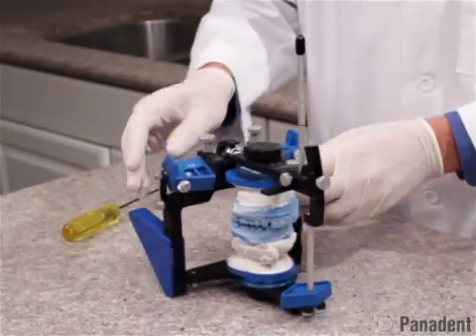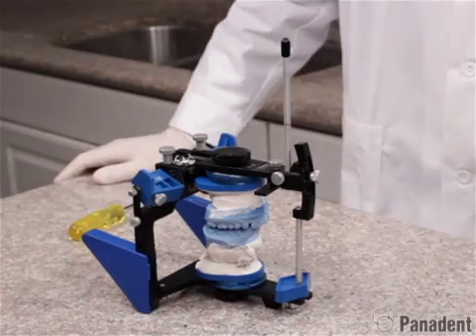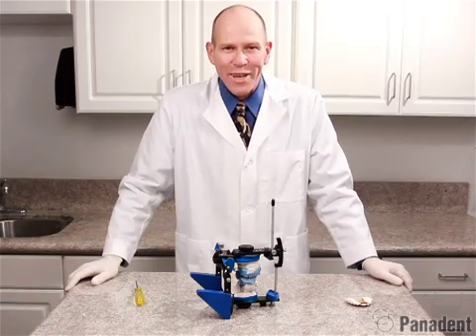We've now set our protrusive angulation into the articulator and we can use this now to diagnose the cast for whatever problems the patient may have. Thank you.